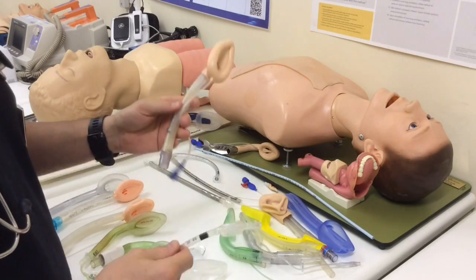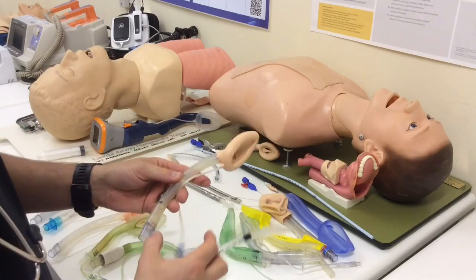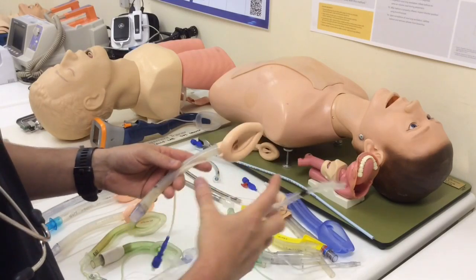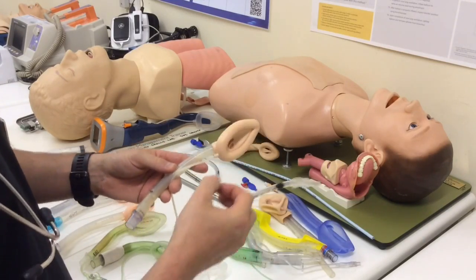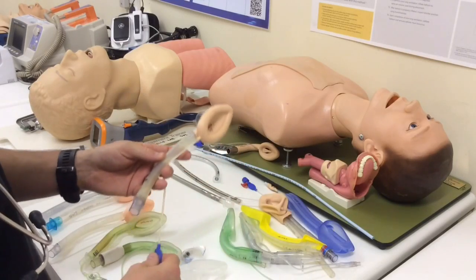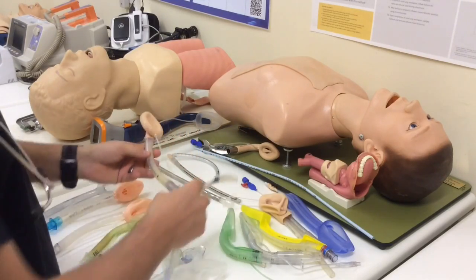I'm going to need a smaller tube to go through here, and then I start having difficulty — if I've got a small tube, is it going to be long enough to ventilate the patient effectively, or pass through the cords, and wide enough to actually ventilate effectively? So that becomes a bit of a problem.